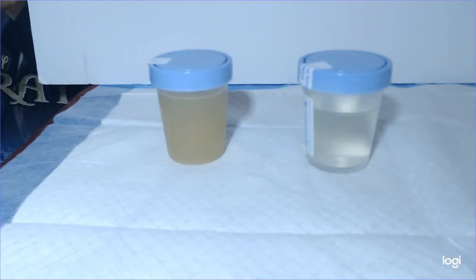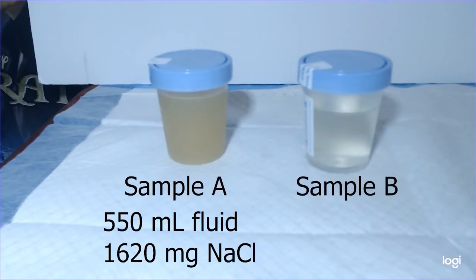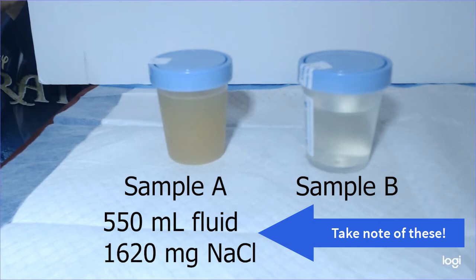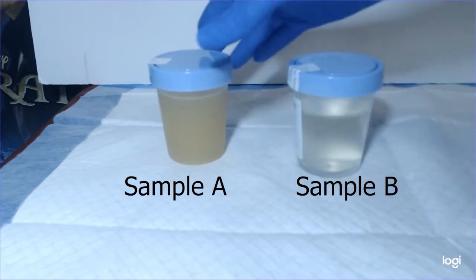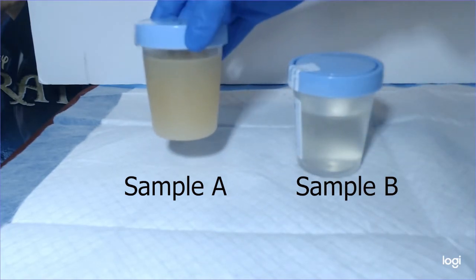Here you'll see 2 urine samples. Sample A was taken on day 1, note the fluid and sodium consumption numbers. Sample 2 was taken after a low sodium morning and consumption of 500 milliliters of water. Note the distinct differences in color.